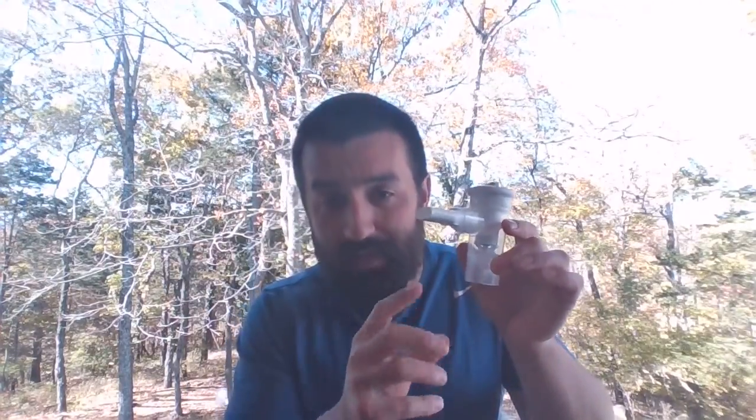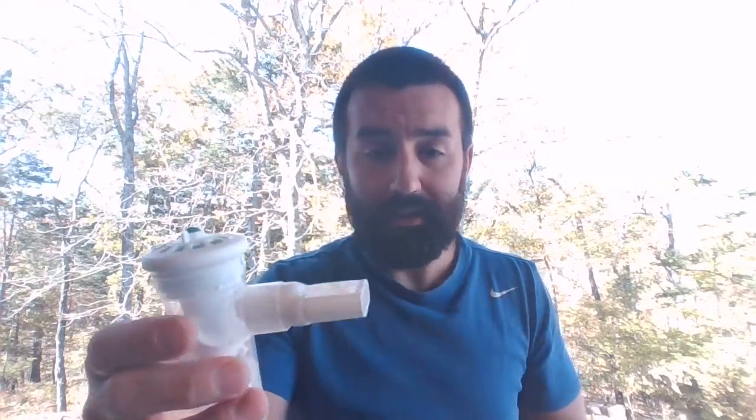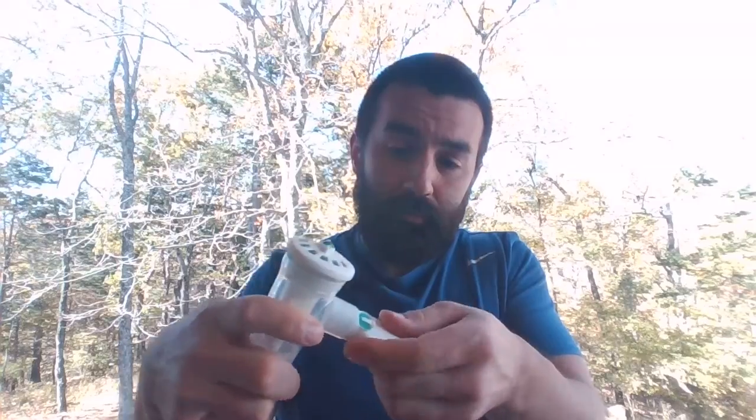A lot of times people will take this off or disconnect this, and they're running their neb on 6, 7, 8 liters, and then they'll see the flow rate shoot up really high, and like, oh my god, I was running on 12 or 13. No, all of our standard flow meters are back pressure compensated, okay? So whenever you're running this thing, you're getting as much as you can through it, okay? But the flow rate on that flow meter truly is the actual flow rate going through this device. So you can see this mouthpiece, I got a little exhalation port, okay?